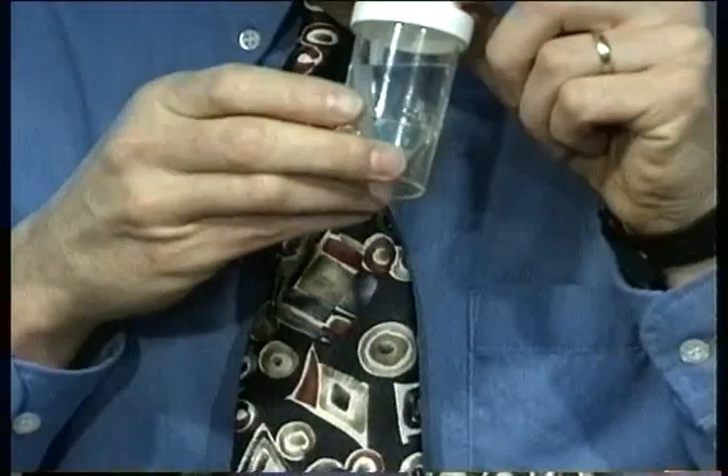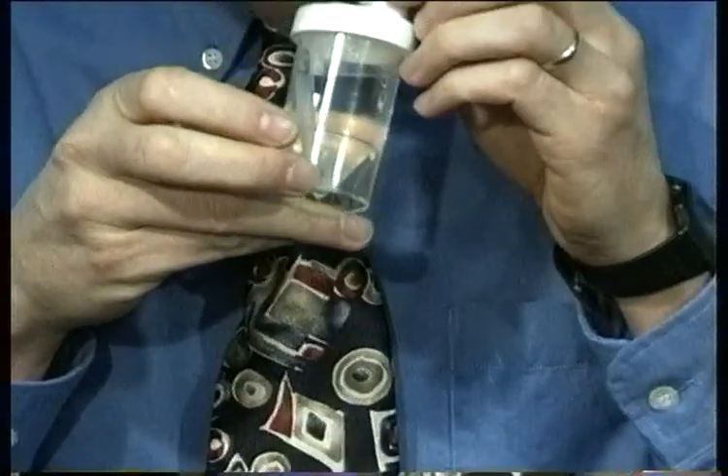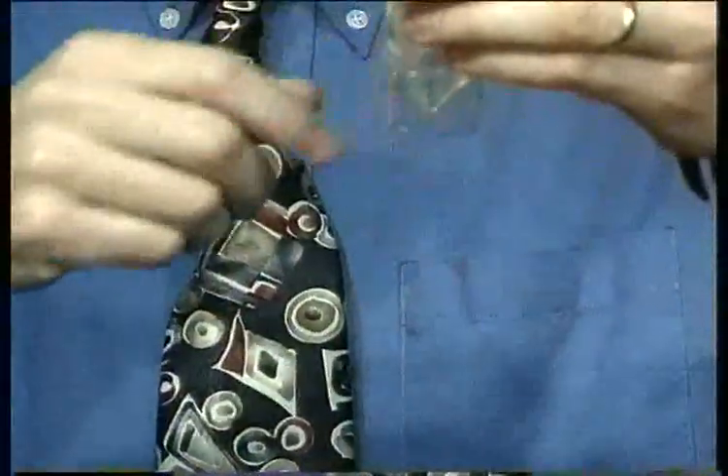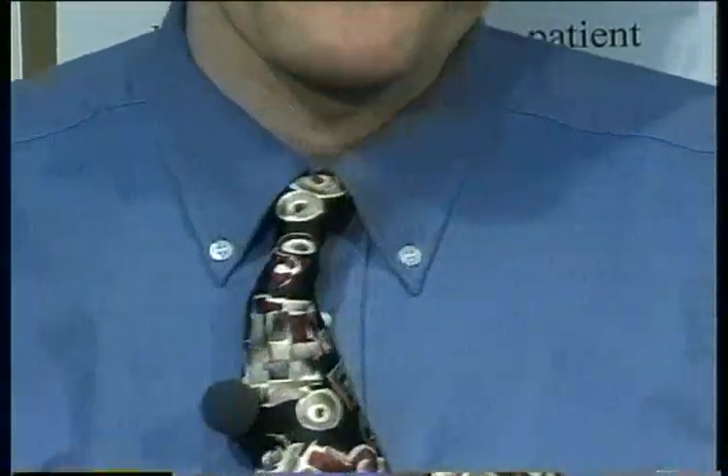You can see these bubbles. The reason that we want to humidify the oxygen is that when you humidify it, you add water to it. You get lots of little water droplets and water vapor in the oxygen.